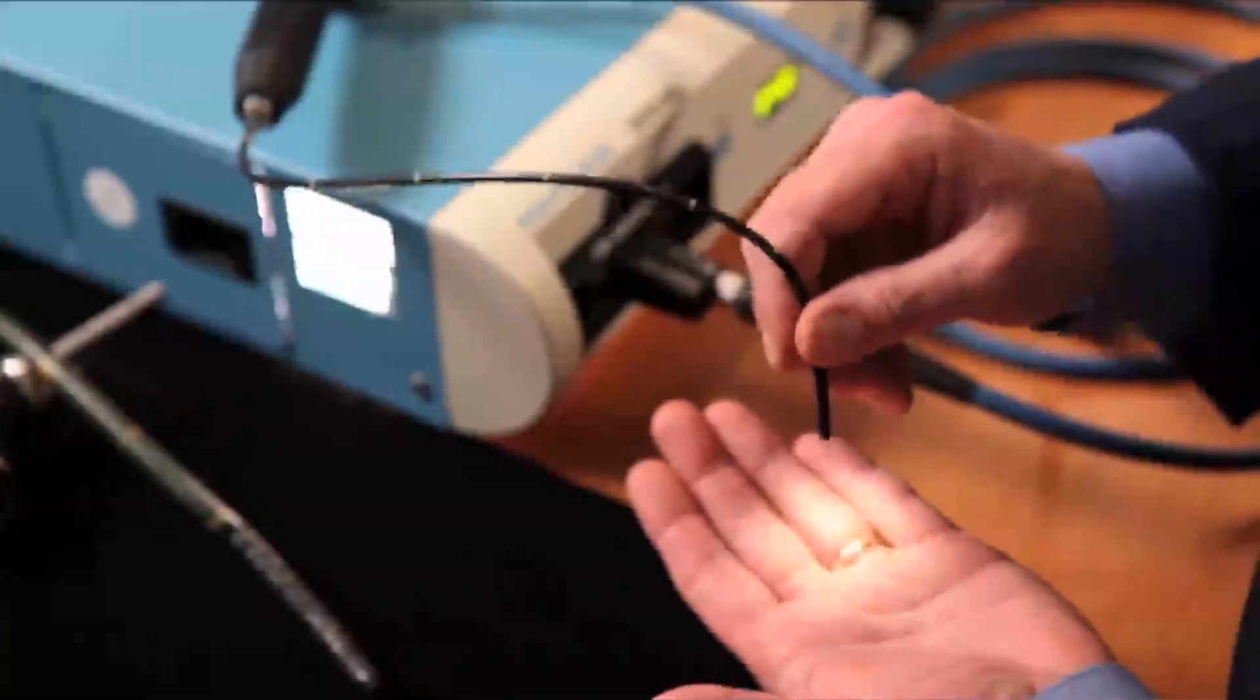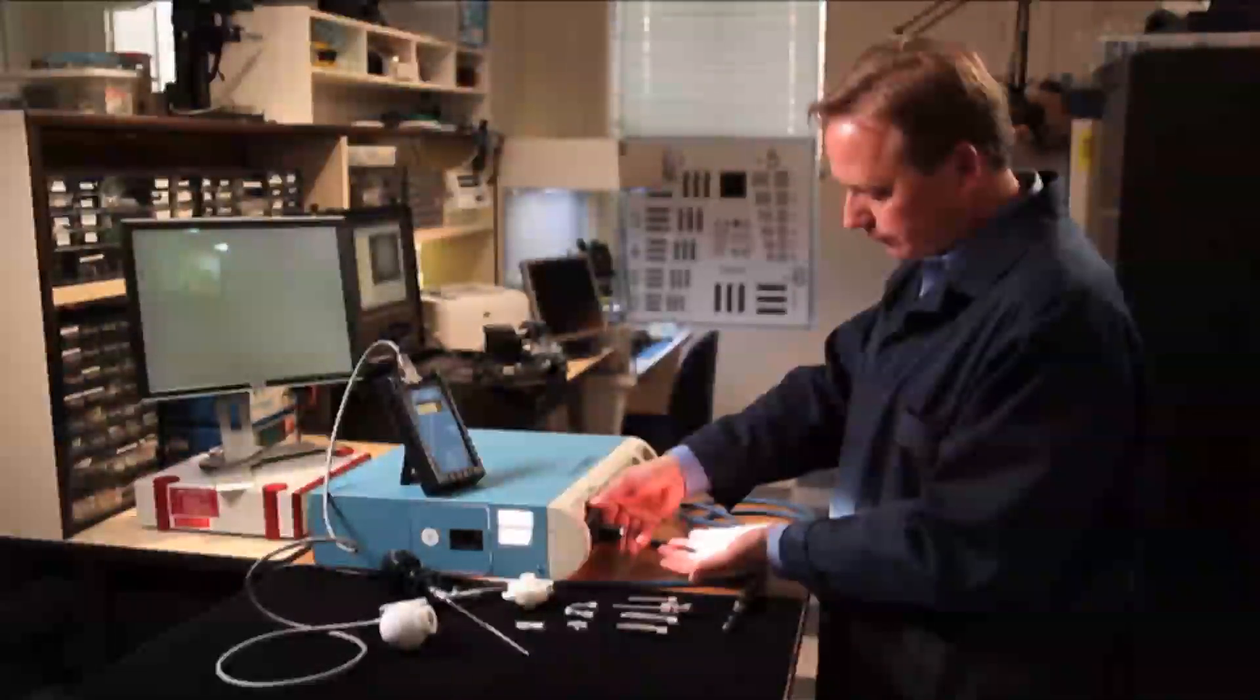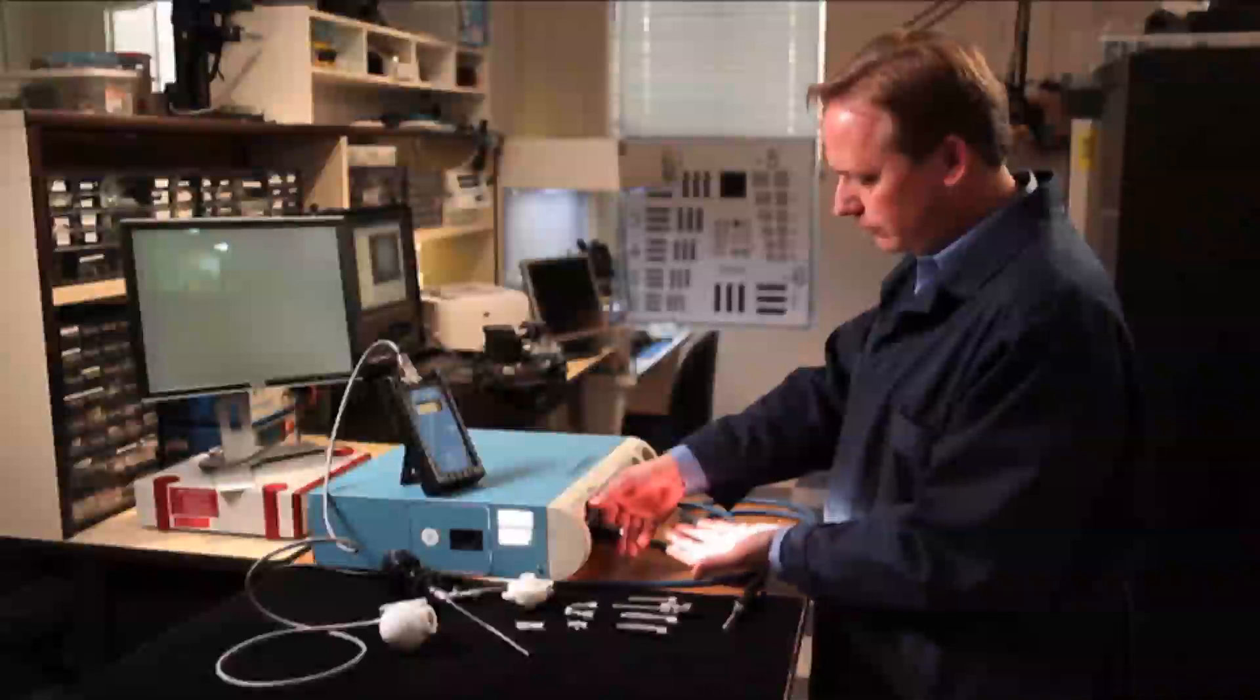It is often difficult to determine whether an insufficient light problem is due to a defective bulb, a misaligned light source, or a defective or damaged light cable, or if the problem is in the endoscope itself.